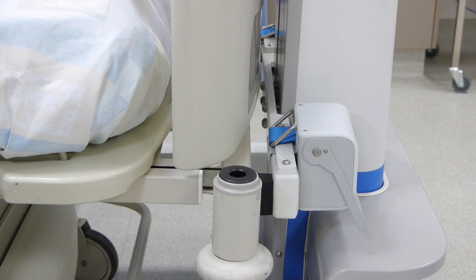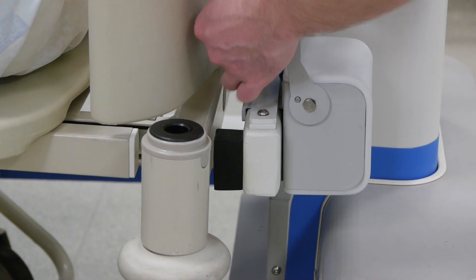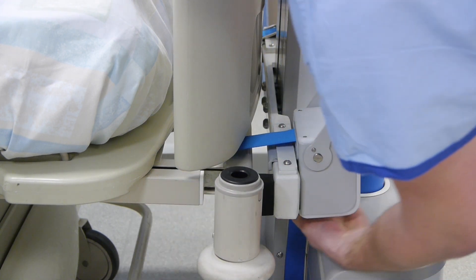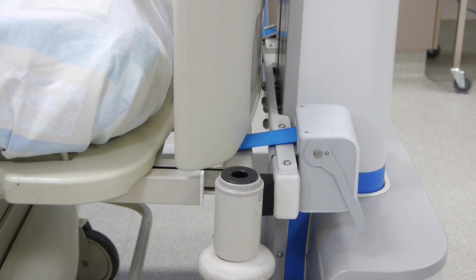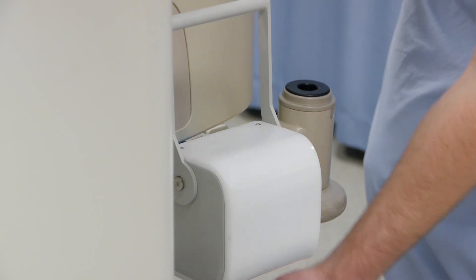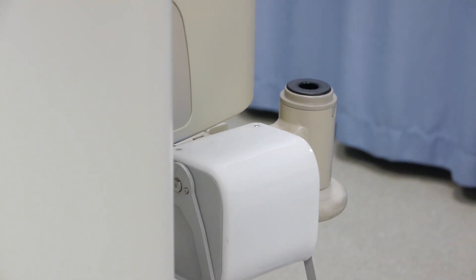To move a flex-hitch unit, simply slide left to right. When everything is lined up, simply pull out the flexi-hitch strap, ensuring that the handle is in the raised position. In addition, wrap the strap around the bed frame and connect to the bracket beneath the flex-hitch assembly. The strap will automatically retract to take up any slack, and then tighten and lock the strap in place by lowering the handle fully down.